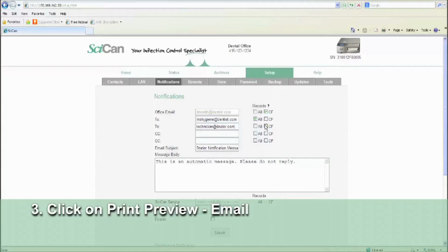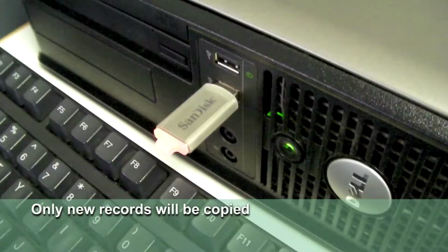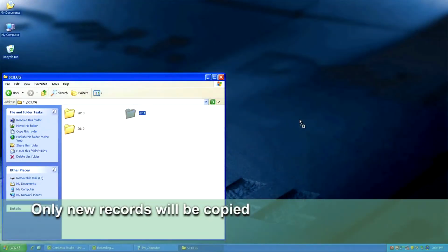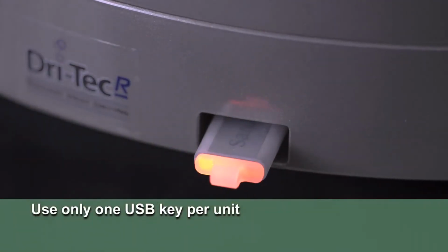The unit is also equipped with a USB port, so you can copy all the data onto the USB, included with each unit, and download all the files onto your computer. The unit will only copy new records onto the USB key, so if multiple USBs are used, the user may have fragmented data records across various USBs. To avoid any confusion, it is recommended to leave the USB in the unit and replace immediately after copying files onto a computer.